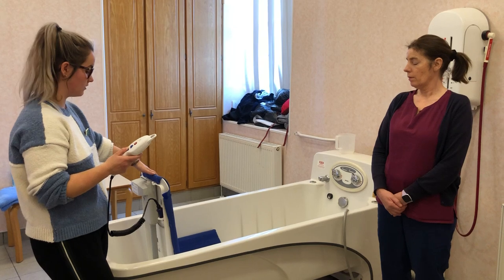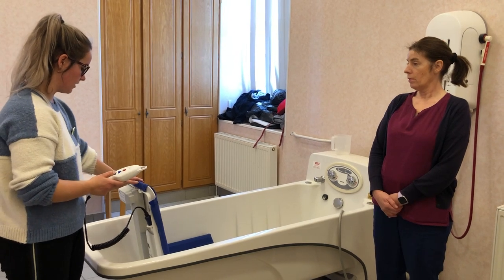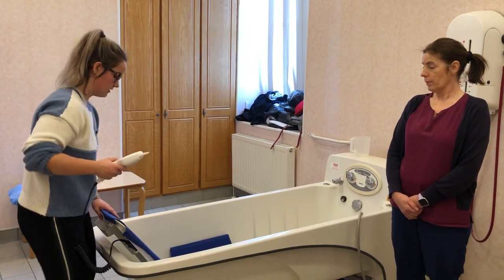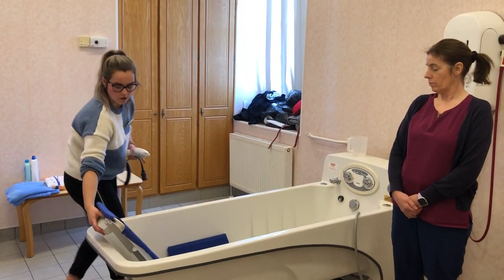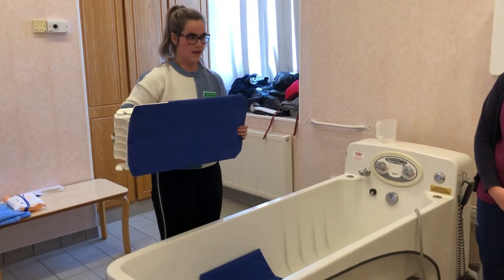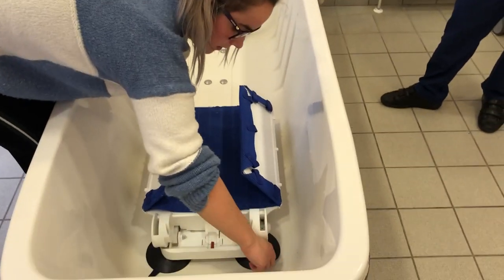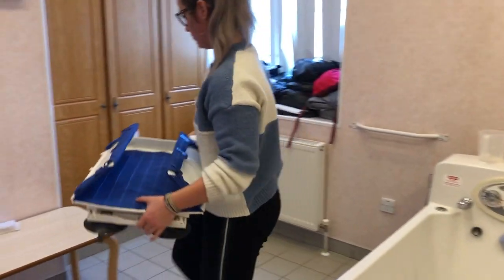A common issue is that some people bring the bath down and the backrest reclines a small bit, then they try to take it out — but you have to bring it the whole way back down. Then remove your remote from the connection, lift out the backrest, flip these down, and give the black suction pads a pull. Then you can lift the seat out from there.